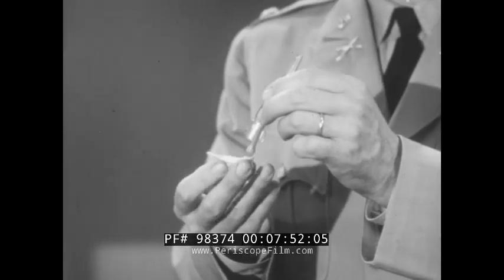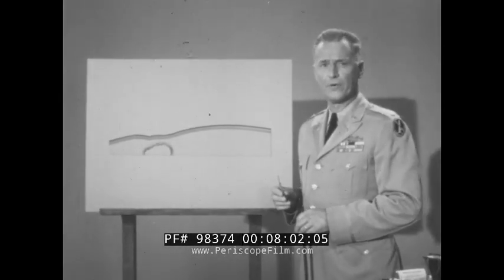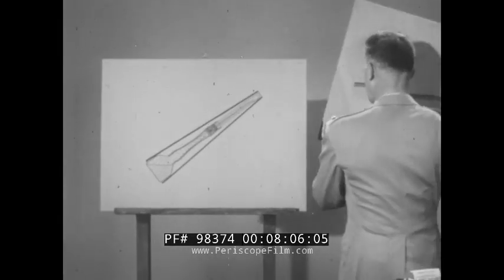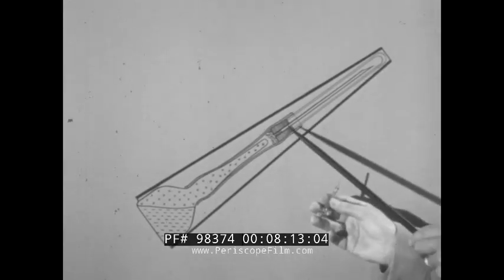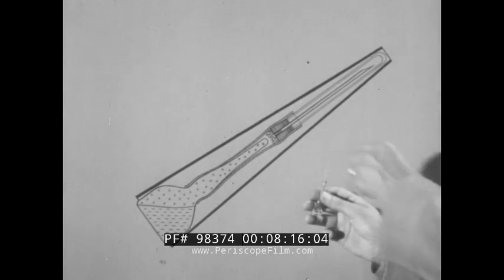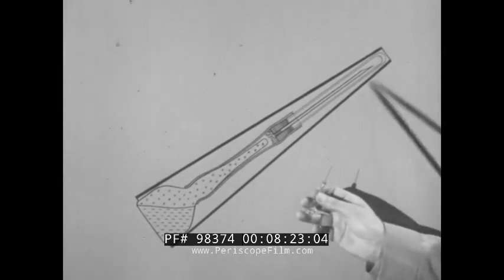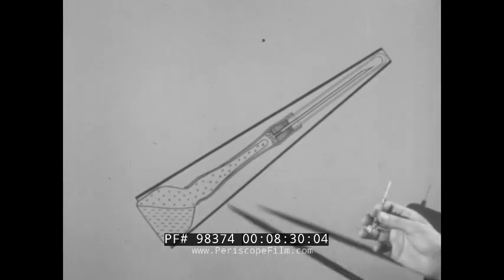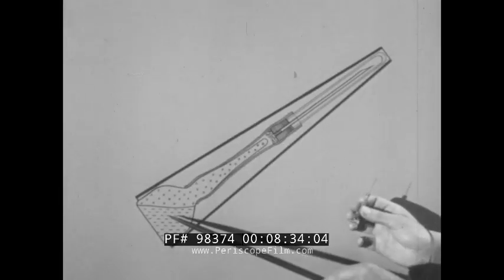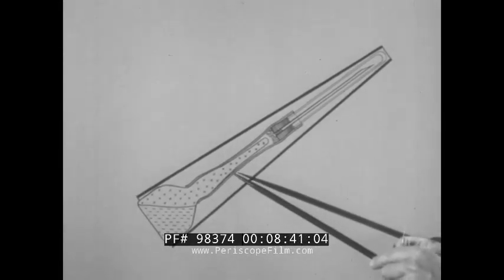By pulling on this string like this, the bottle — which is the ampin — is released. Now let's see what the component parts of the ampin are. The needle has a plastic cover, which is removed by pulling. The ampin does not have a wire stylet in the needle; it isn't necessary. The ampin bottle has a long glass neck, and the rubber tubing protects the seal. The bottle part of the ampin is about half full of atropine solution, and this empty space in the bottle isn't really empty — it contains helium gas under pressure.